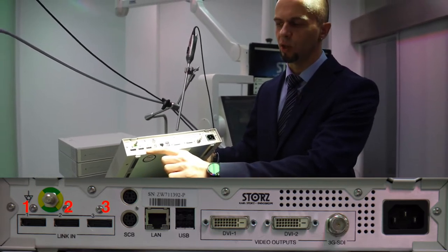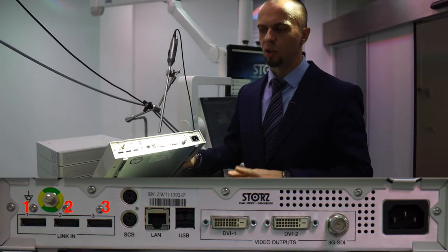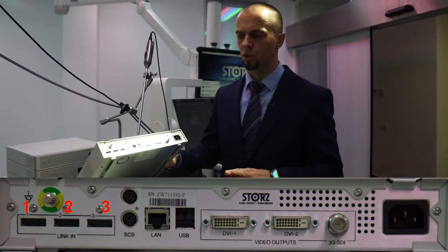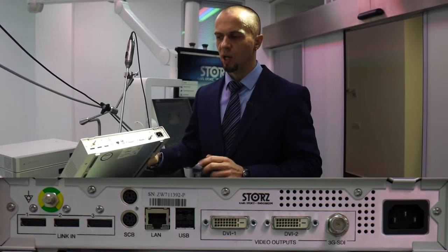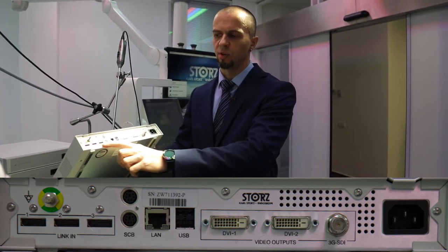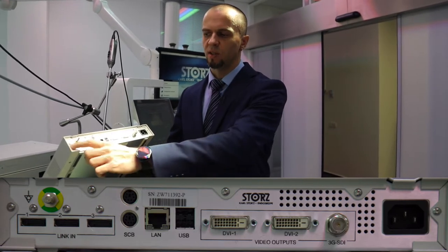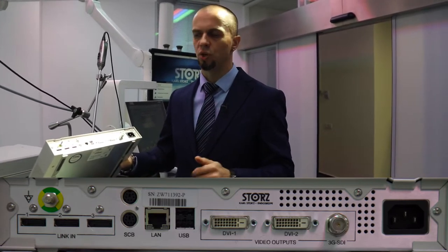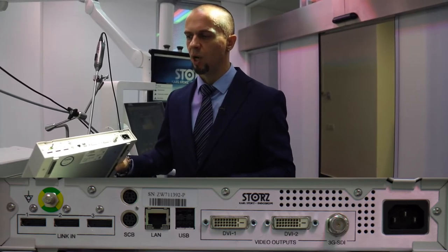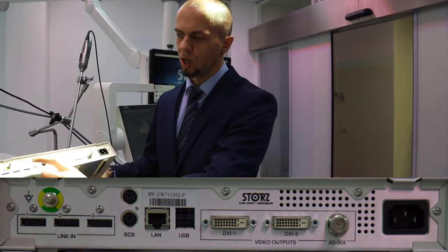Мы можем подключить к платформе одновременно до трёх различных видеоисточников, источников видеосигнала — один, два, либо все три задействовать. Последовательность задействования любая. Можете подключать линк-кабелями в любом порядке, как вам удобно.